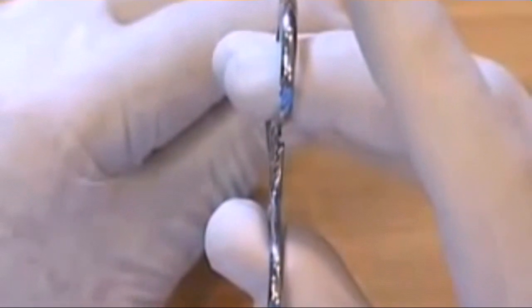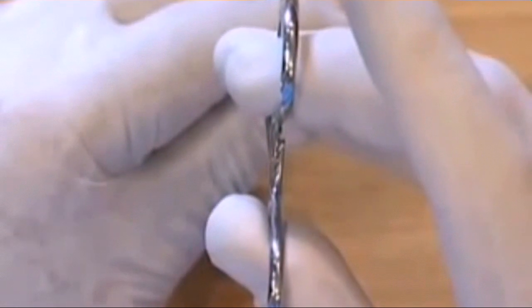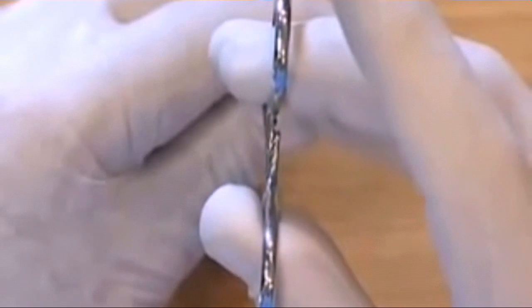It's possible to see which part of the needle holders has to be pushed and which part has to be pulled.